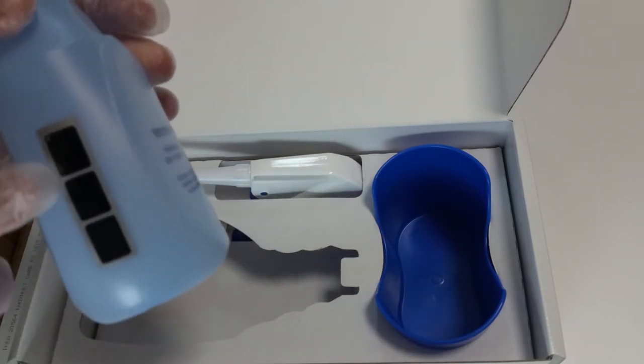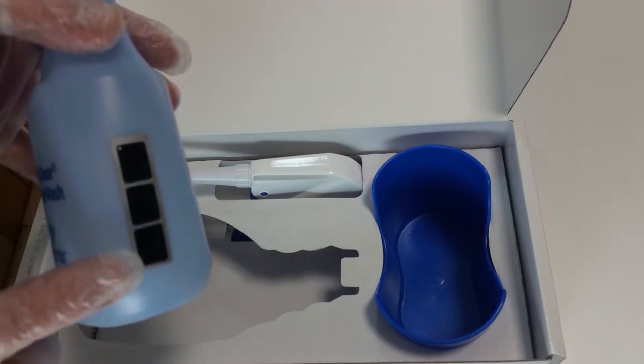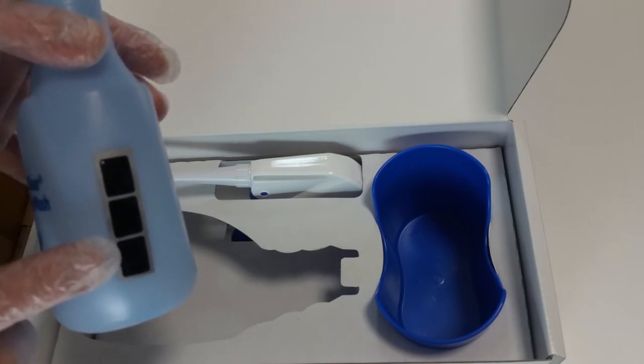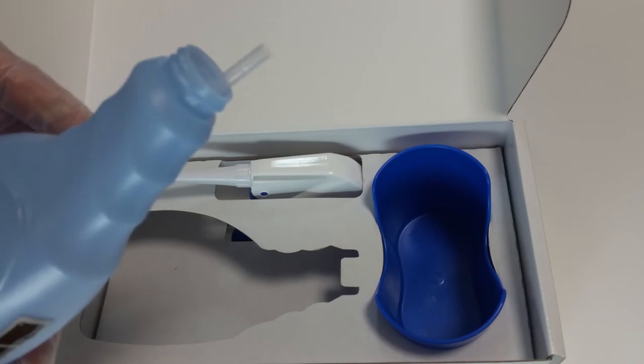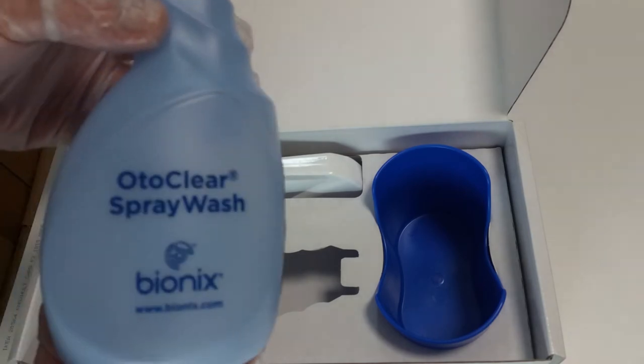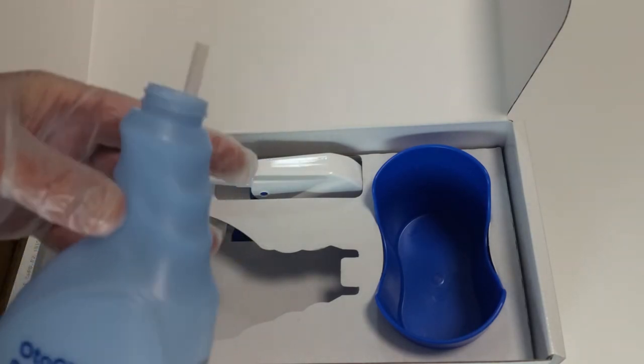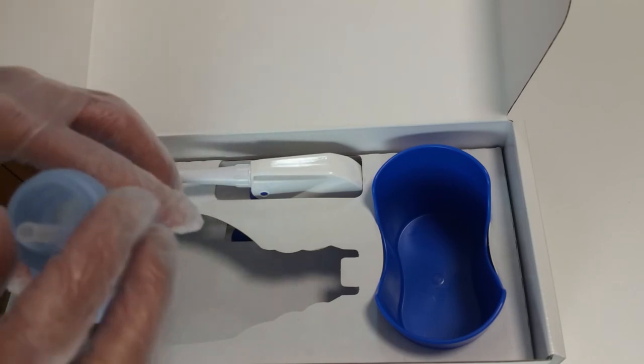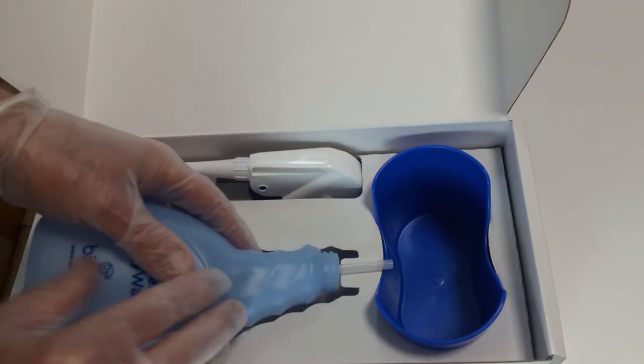But what I want to show you is this indicator at the back of the bottle. That indicates the temperature of the water in the bottle. I'll just put that back in.